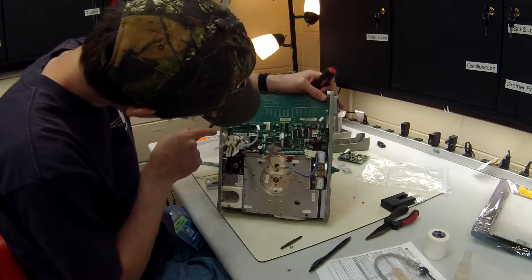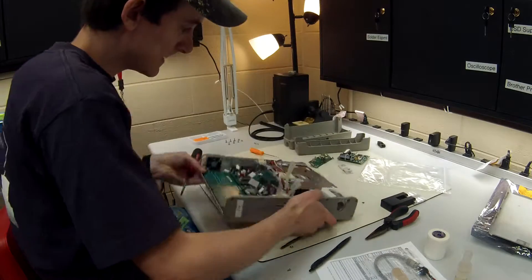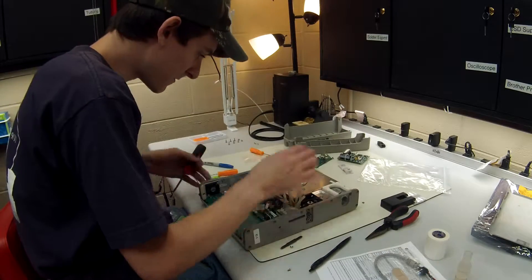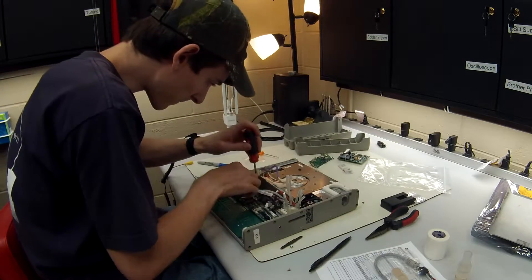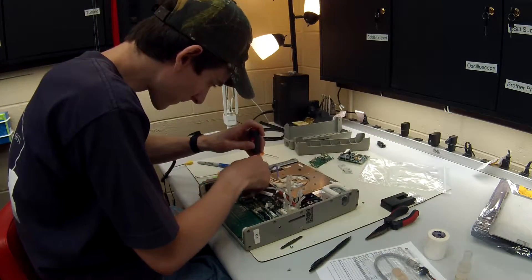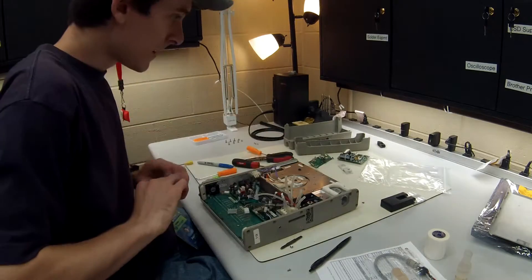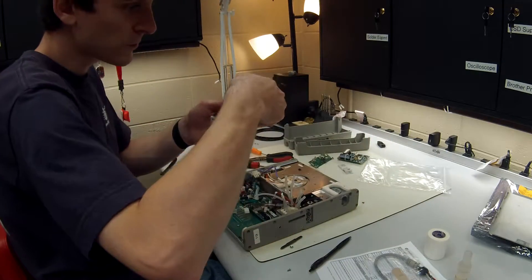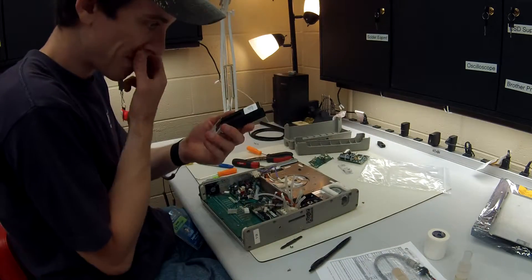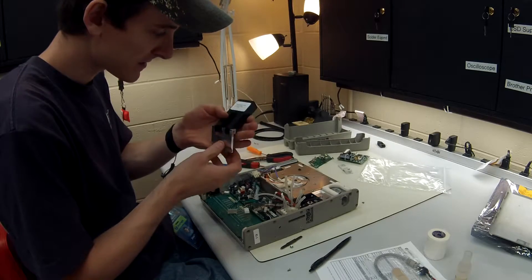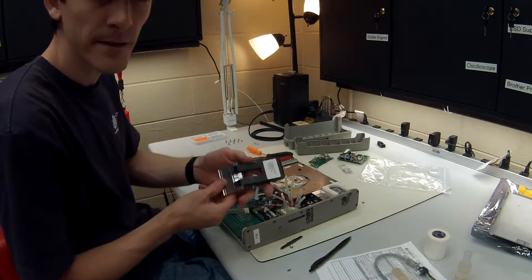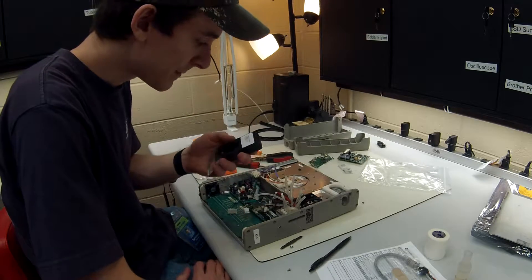And there's another one somewhere else. Let's start removing those screws, there should be like four of them. Okay, there's a special little tool that Carefusion provides, you can buy it, I don't know how much it is, but it's part number one one five nine nine.